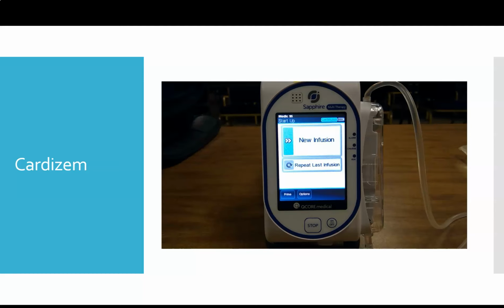All right, the next medication we're going to look at on the pump is Cardizem. Cardizem is the most complex med to run through the pump, but it actually is very user-friendly once you have it set up and running. It just takes a little bit more effort on the back end.